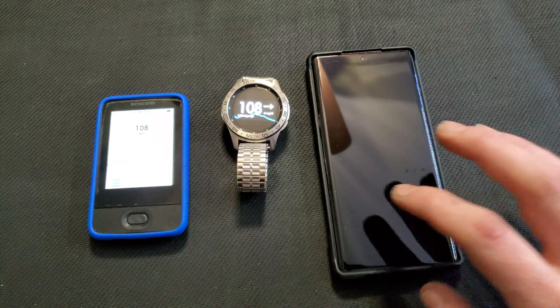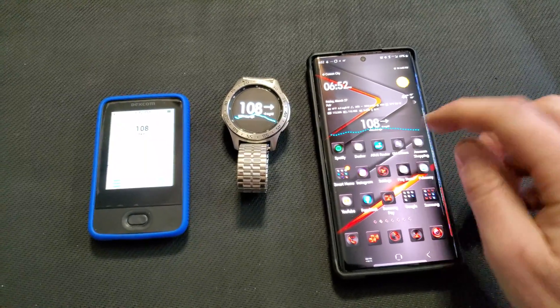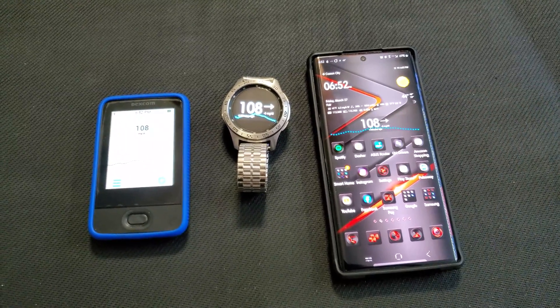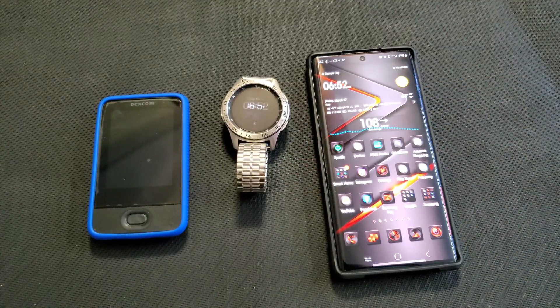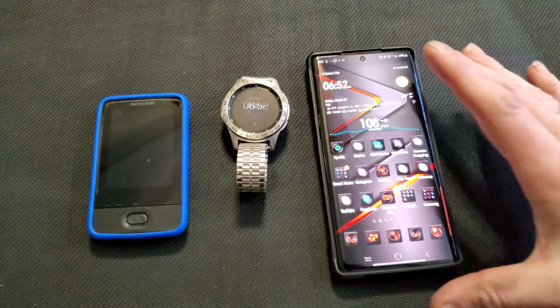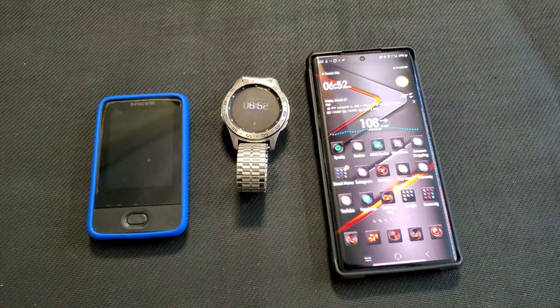You can see it's the same as my receiver there, and also right there on my home screen. So I'm going to erase all this so it's like it's not even there, and we'll get into it and I'll show you how it works.